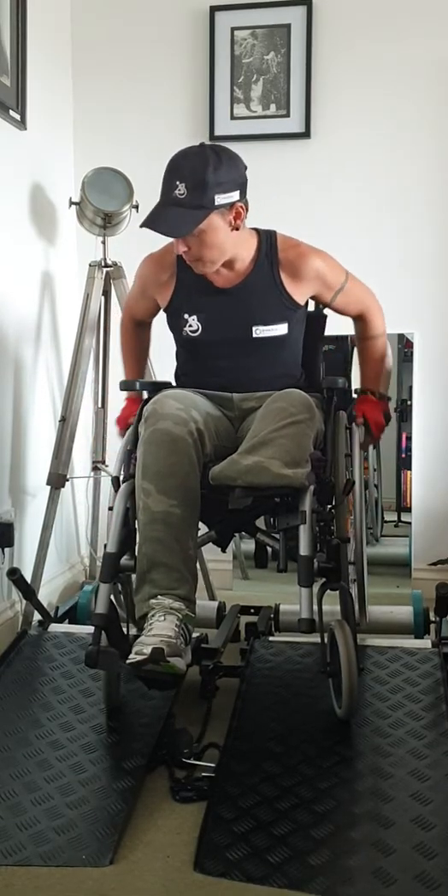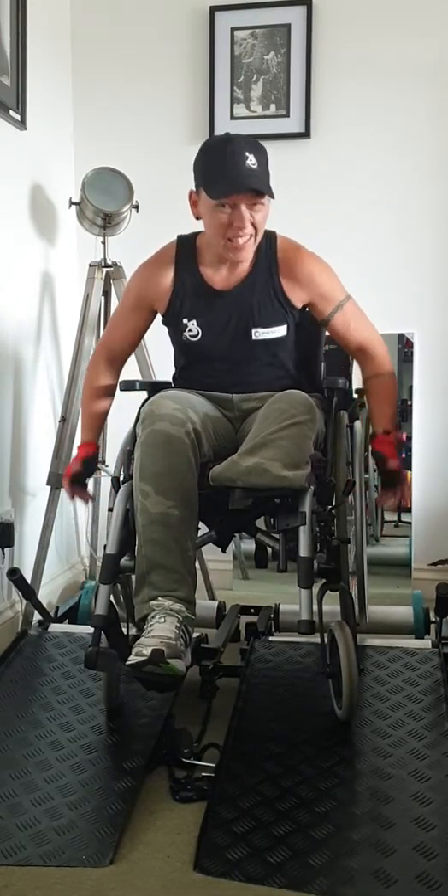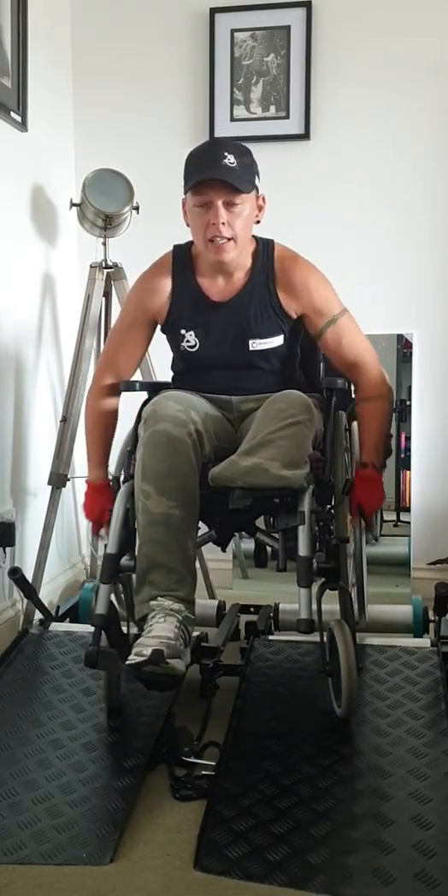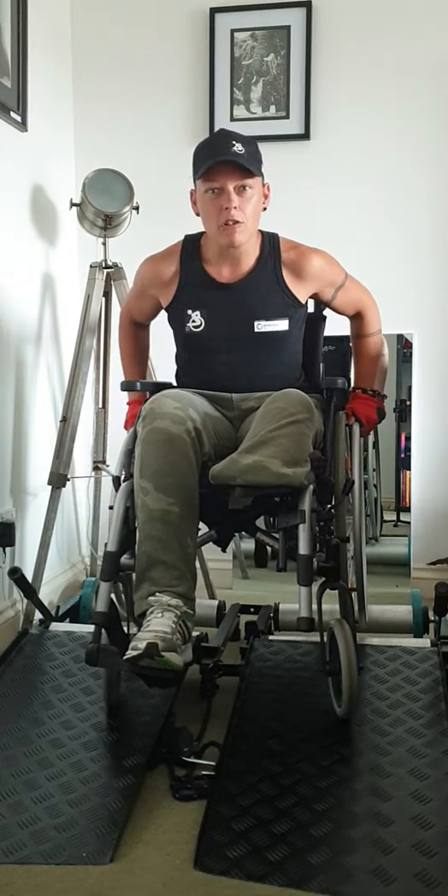As you can see, the movement is quite fluid. You kind of push and it does stop at the end of a push, but again it won't do that when I've got better tyres — so this is mainly down to the structure of my wheelchair.